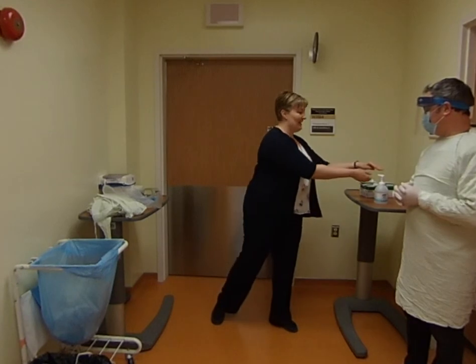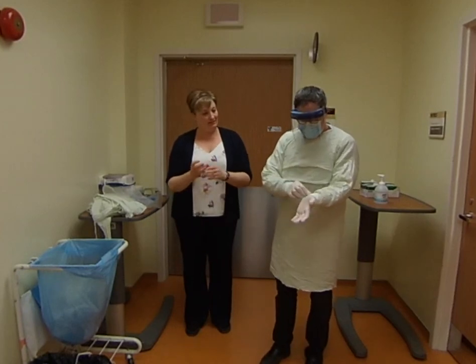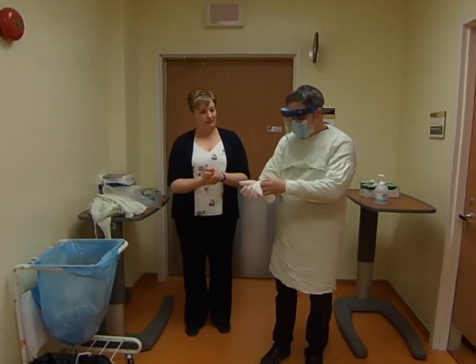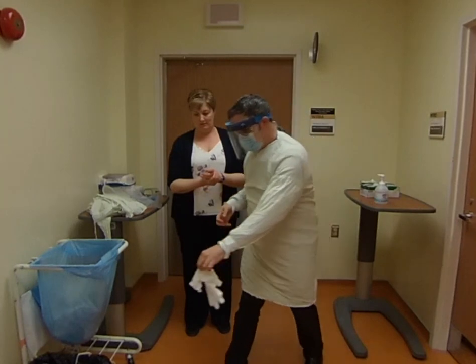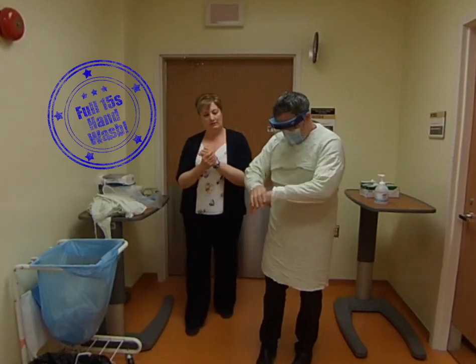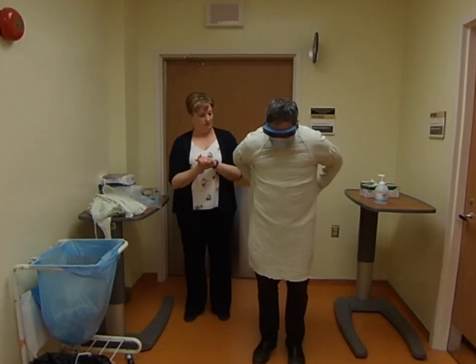And then the last thing is to wash my hands. Now it's Glenn's turn. He's right-handed, so he takes the left glove off first, uses the inside to take off the right glove, then into the garbage. Hand hygiene for 15 seconds. Next is the gown — starting at the waist first, untie the waist.